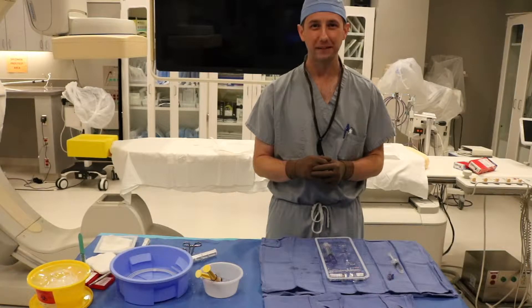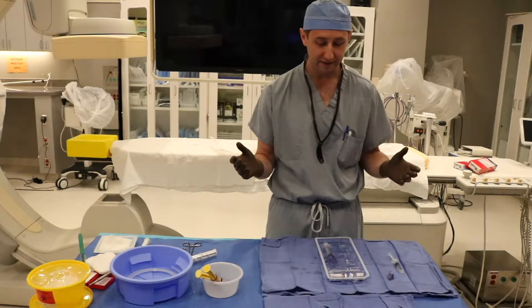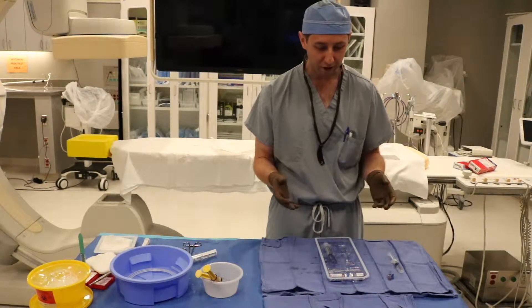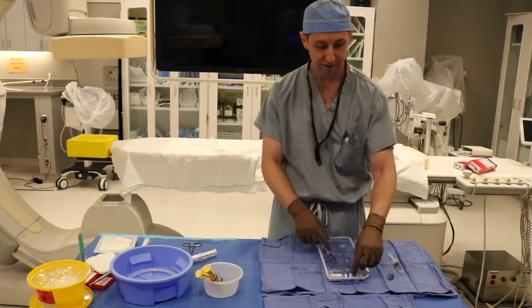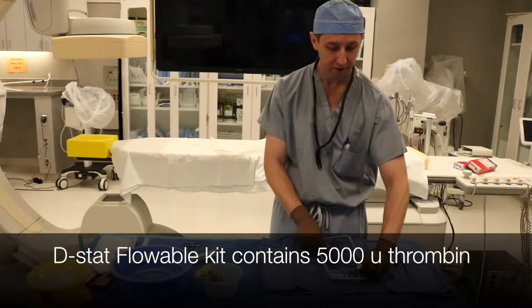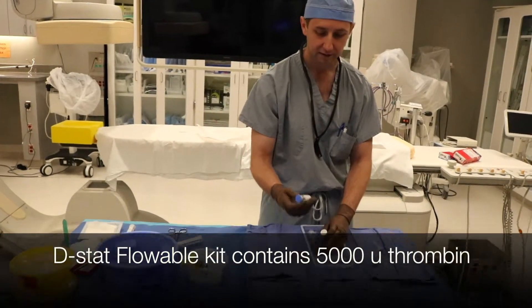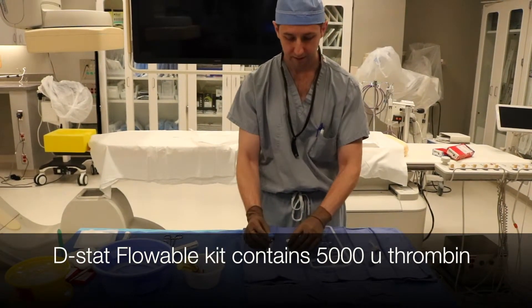Hey guys, I'm Chris Beck with the Backtable team and I'm going to show you guys how to mix up some thrombin. The thrombin that we have in our cath lab is the D-STAT Flowable, and you have two vials here: one is your diluent, and the other is 5,000 units of thrombin.